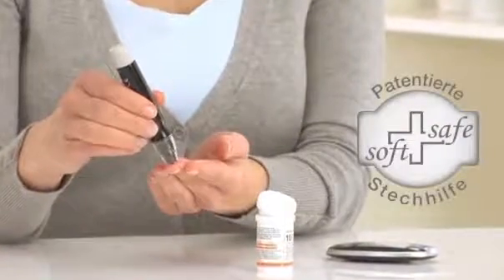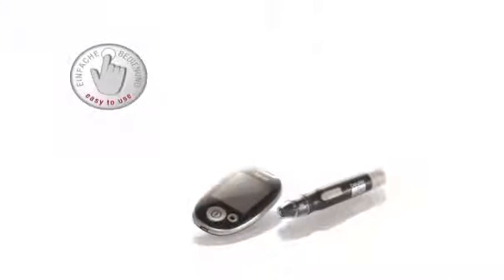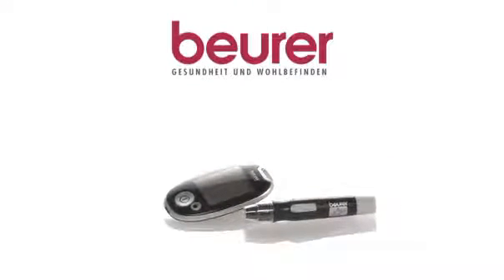The patented soft and safe lancing device is included in the delivery of the GL44. Easy to use, the GL44 blood glucose monitor from Beurer.